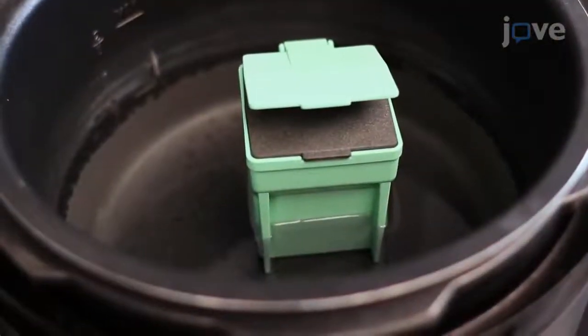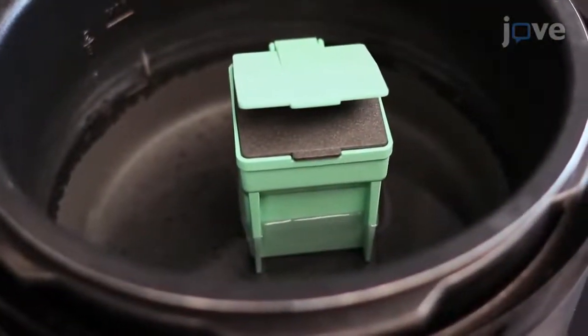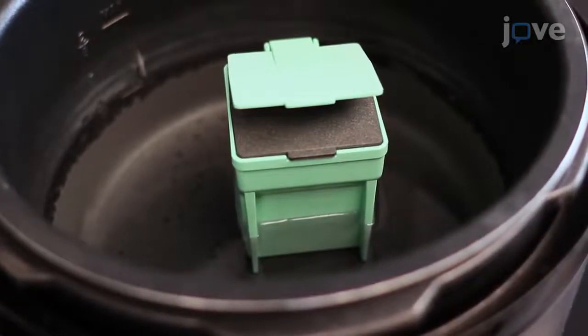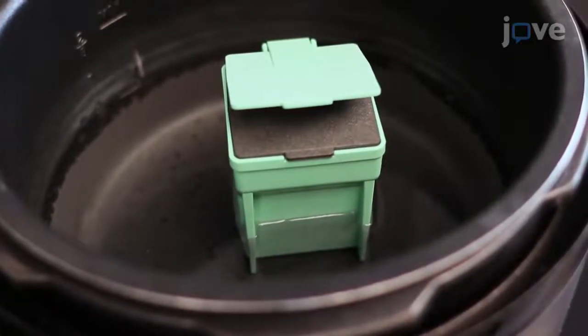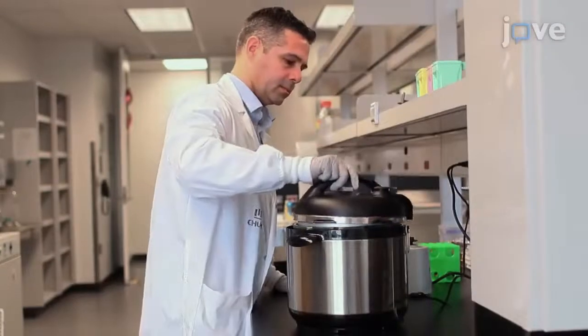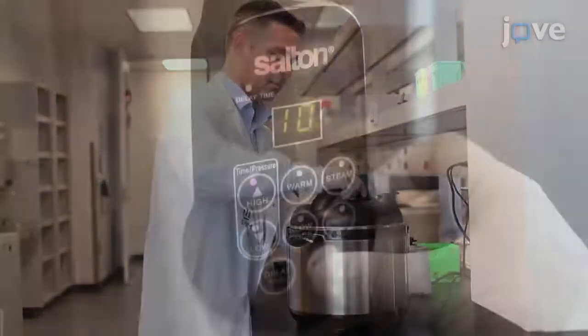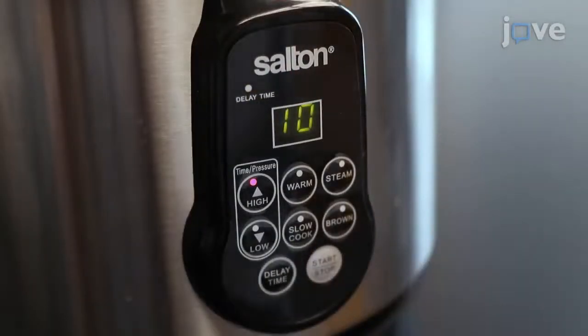The water level should not exceed half of the height of the jar so that the water does not mix with the antigen retrieval solution. Close the lid and the pressure valve on the cooker and treat the slides with high pressure for 10 minutes.